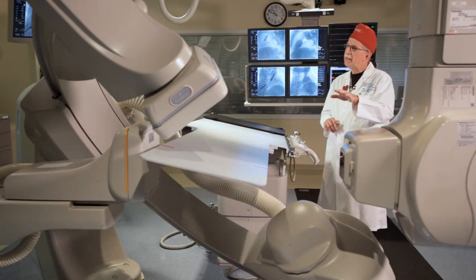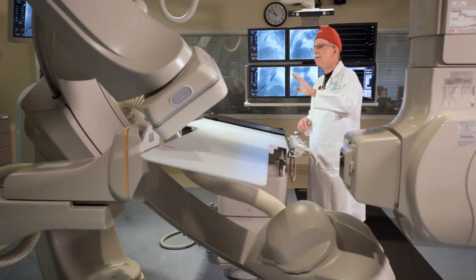And then as that moves up, that moves the patient's head up. That's just the same as continuing to move the camera further toward the patient's head.